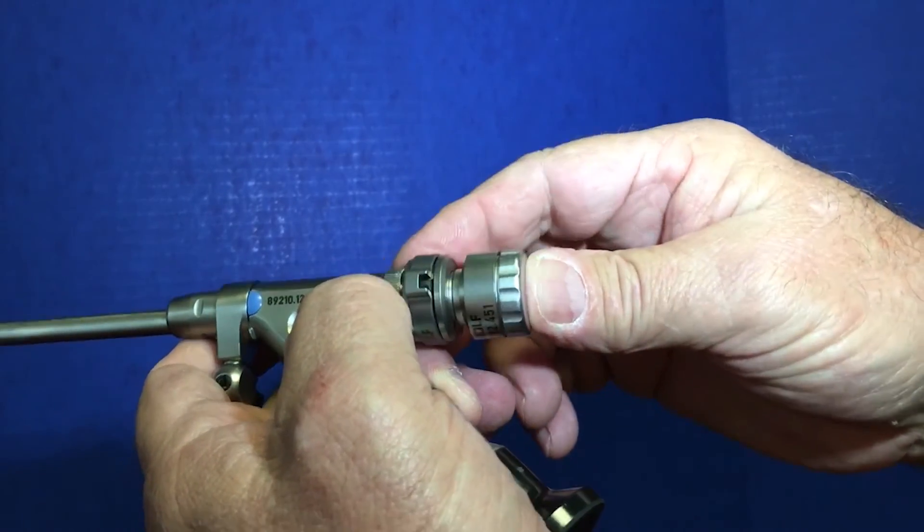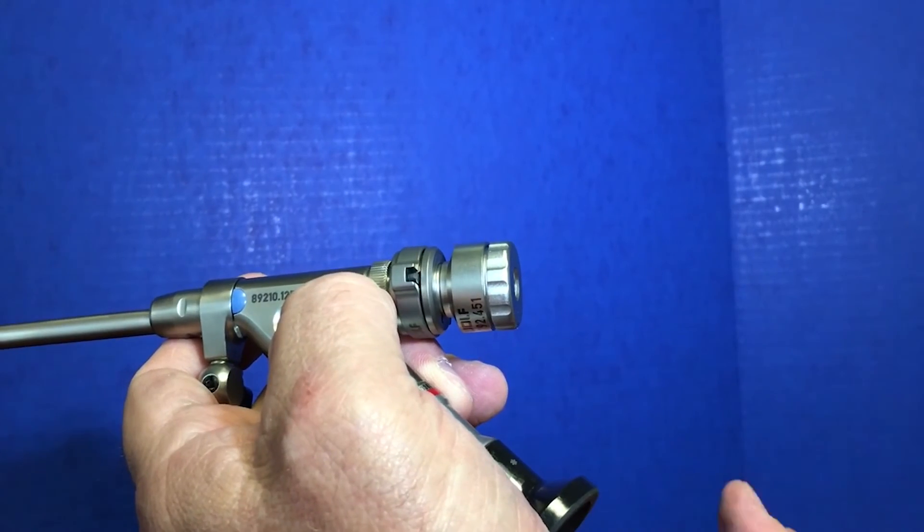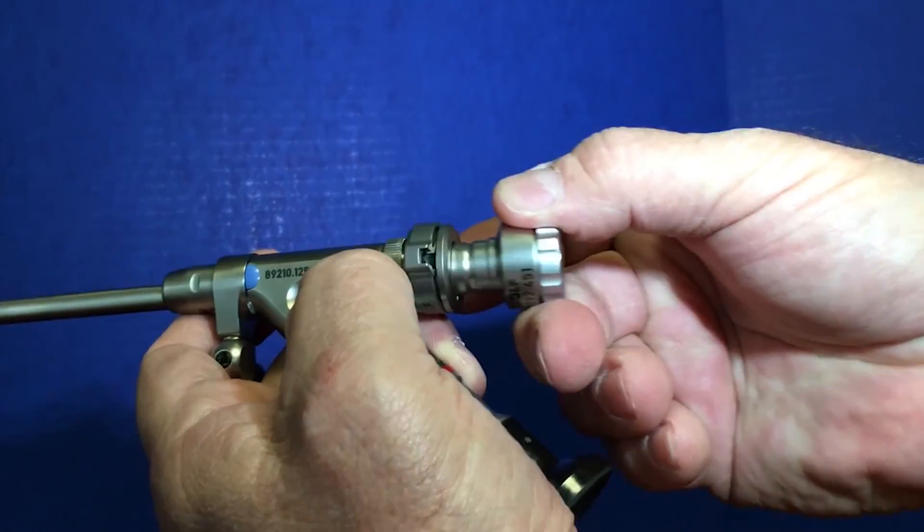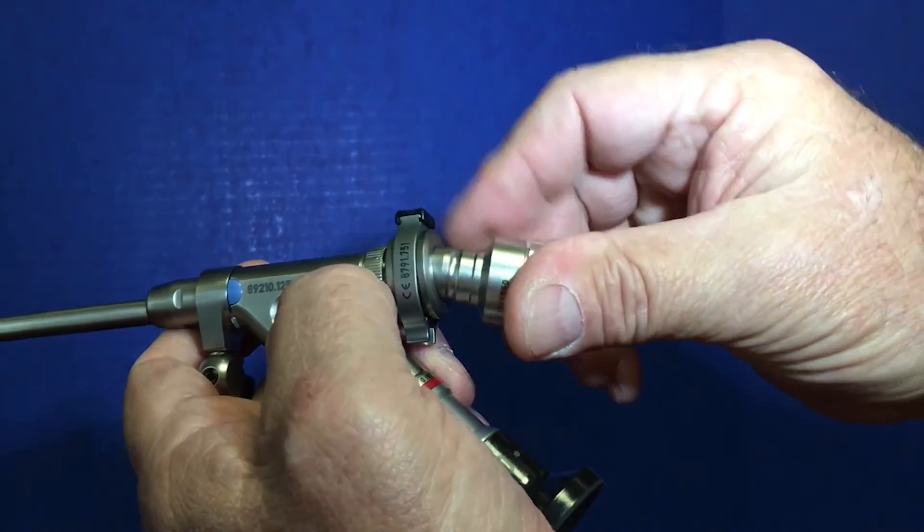And then that way this can be inserted when necessary to create some form of hemostasis, back pressure, and then removed by depressing this portion.